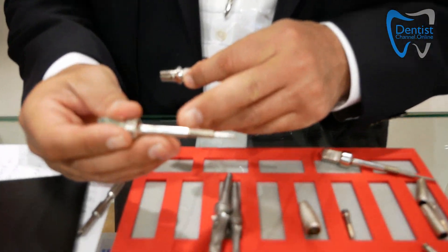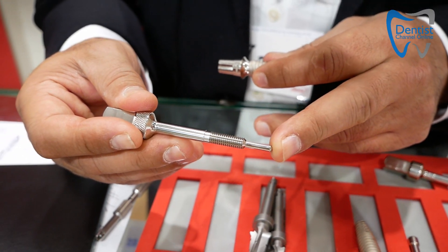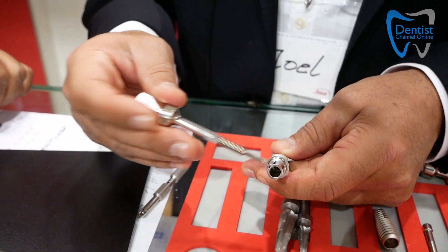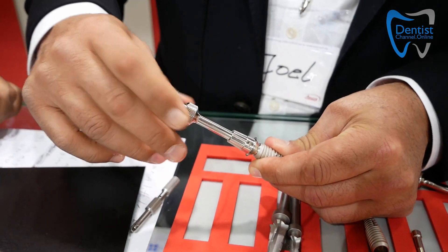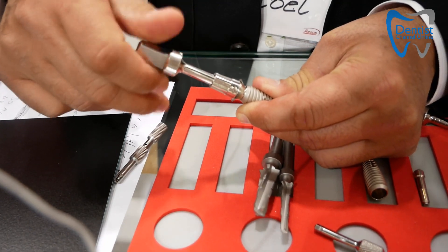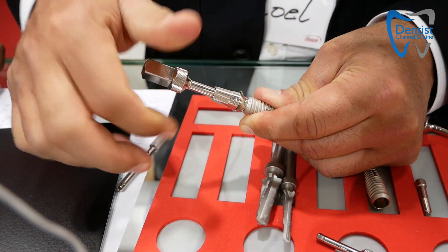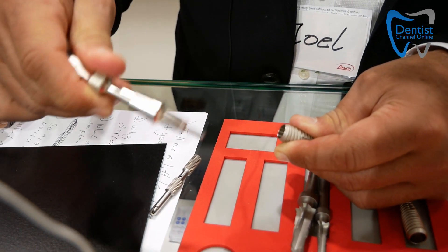So you have to have the abutment removal tool as you see here. This abutment removal tool has threads right in it, and it has this point that bottoms out on the inner portion of the well of the implant. There's no screw holding the abutment in place. So we simply drop this down and it slides down the middle of the abutment. You screw the threads into the threaded portion inside the inner portion of the abutment — put it in until it bottoms out. When it bottoms out, you continue turning righty-tighty, and you can see the abutment lifting right up.